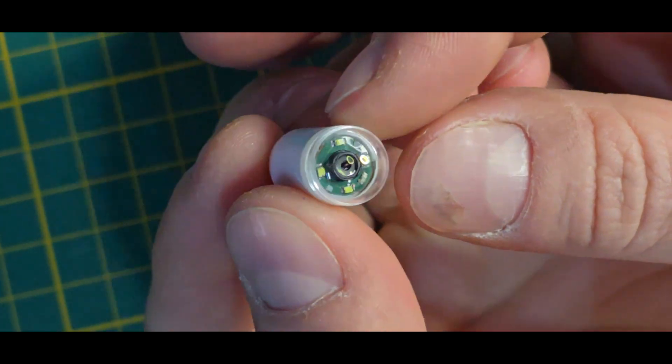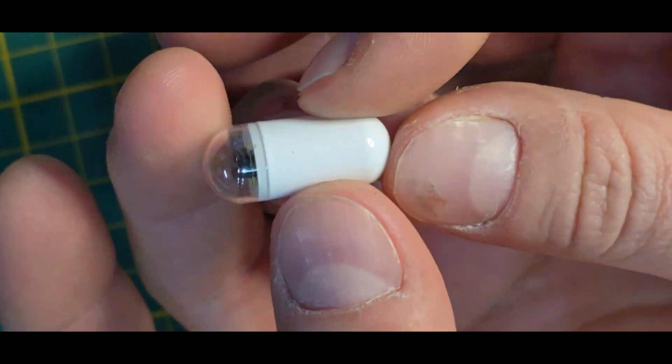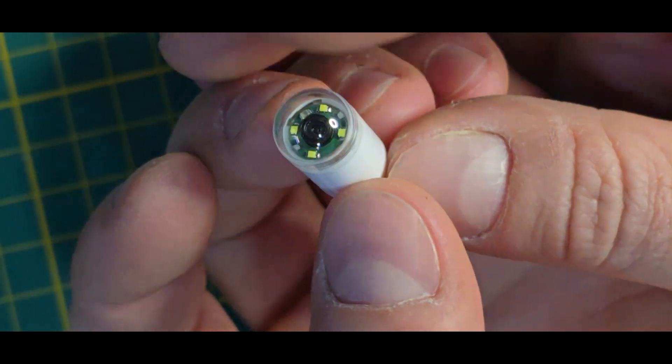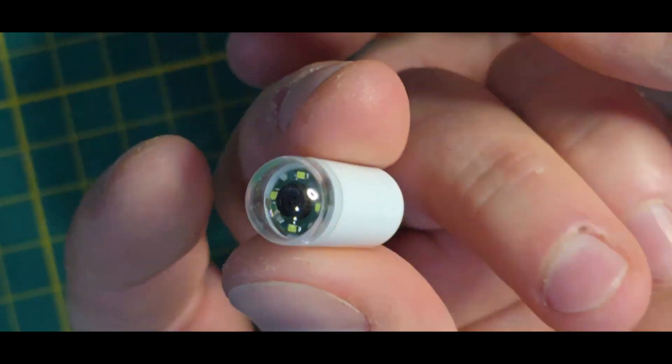Hey guys and welcome to this new video. Today I have quite the special object. It's this pill camera or also called capsule endoscopy.